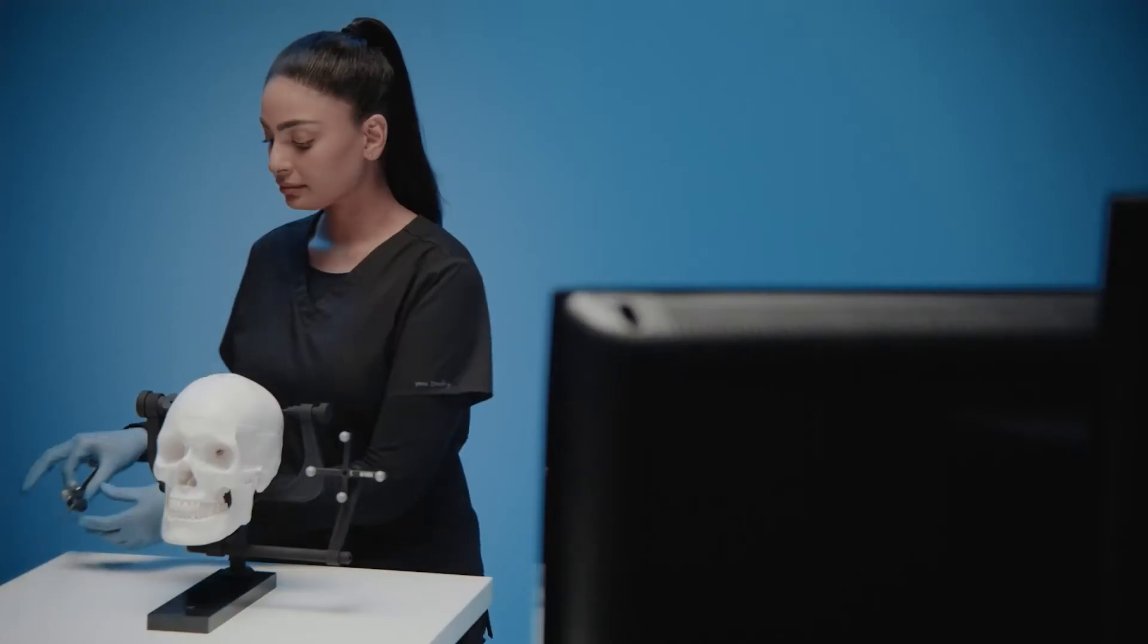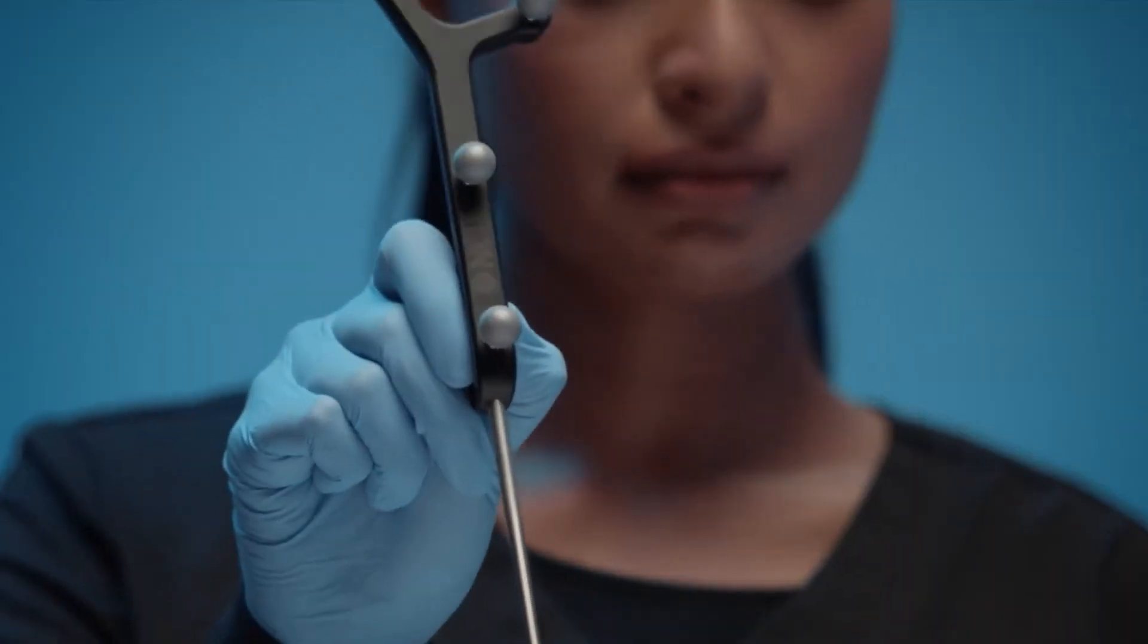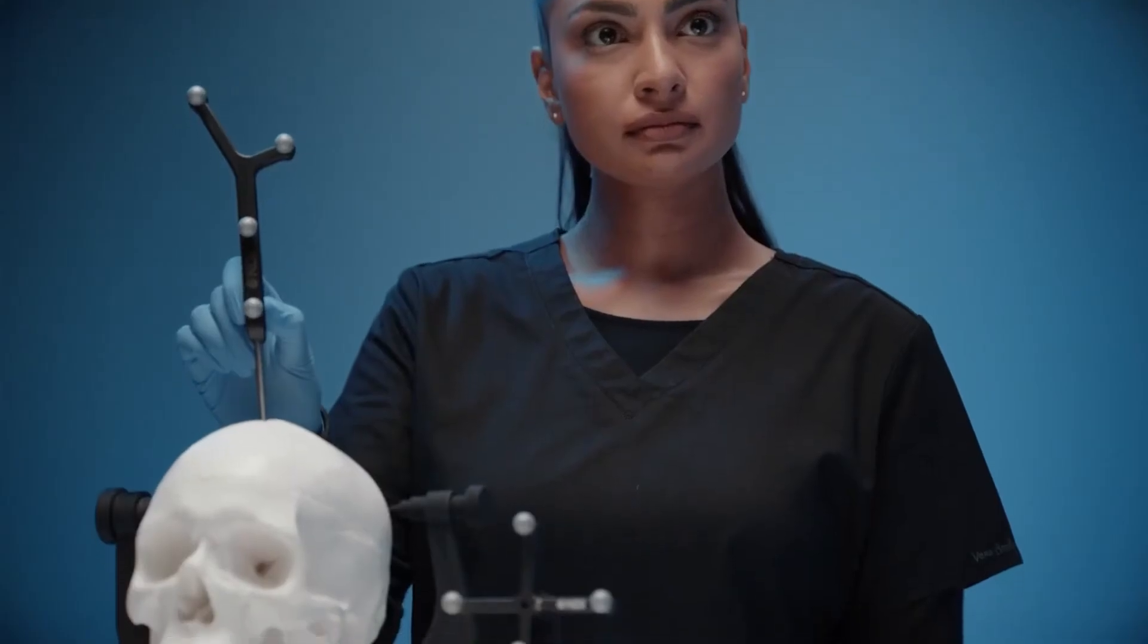When attached to surgical instruments, NDI passive marker spheres act as location points for the instruments in the OR.